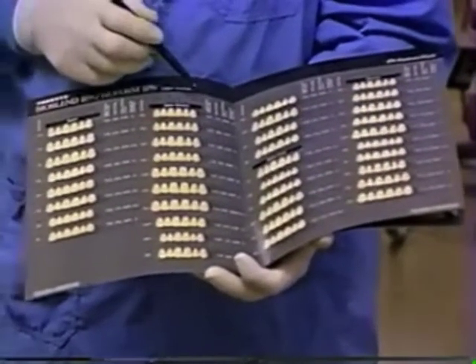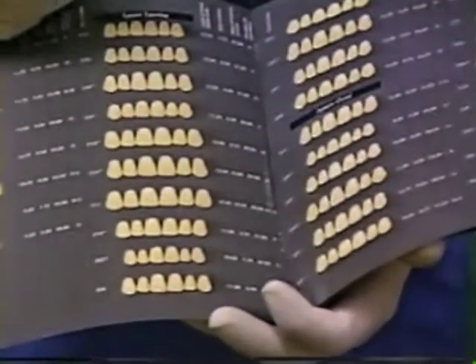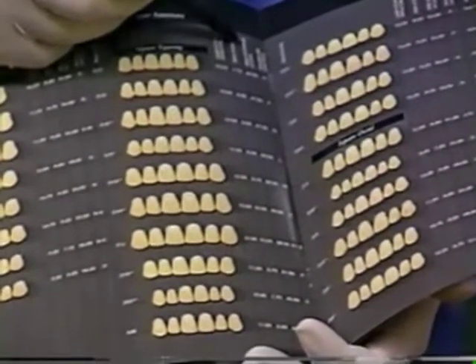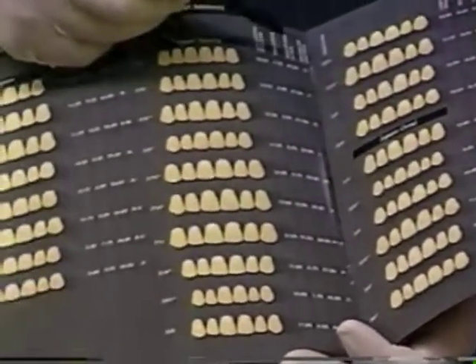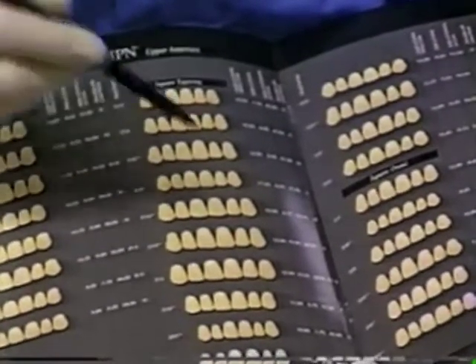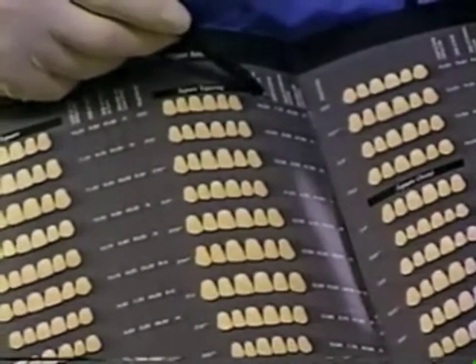Looking at the description of these teeth, the first column to the right of each tooth is the length of the central incisor without the collar — that's the length we found to be ten and a half millimeters. The next column is the width of the central incisor, the third is the width of six anteriors arranged on a curve, and the last is the corresponding mandibular anterior tooth. We don't find many seven and three-quarters millimeter teeth — there's one here at seven and three-quarters by ten and a quarter, but that's an awfully small tooth.